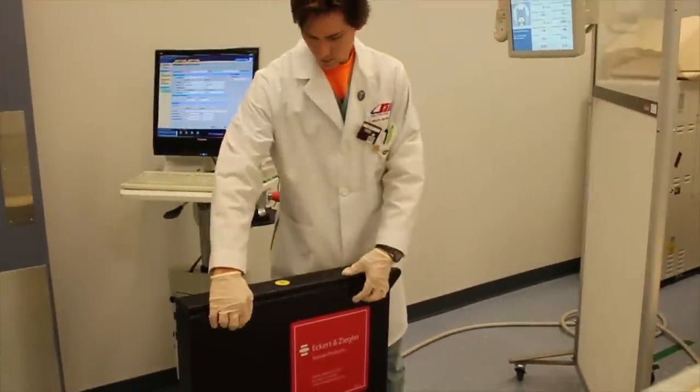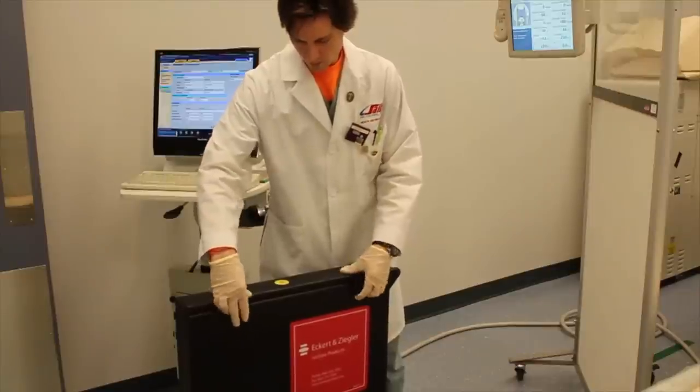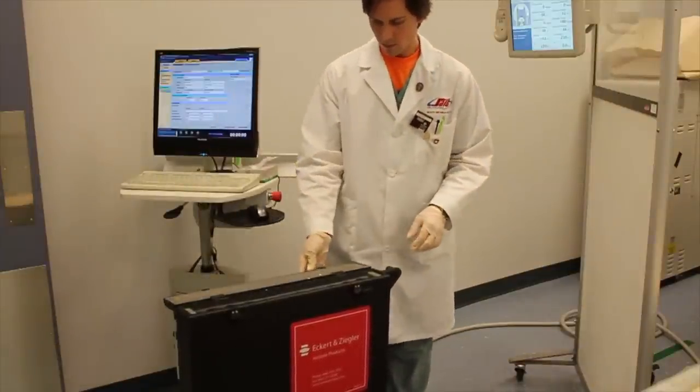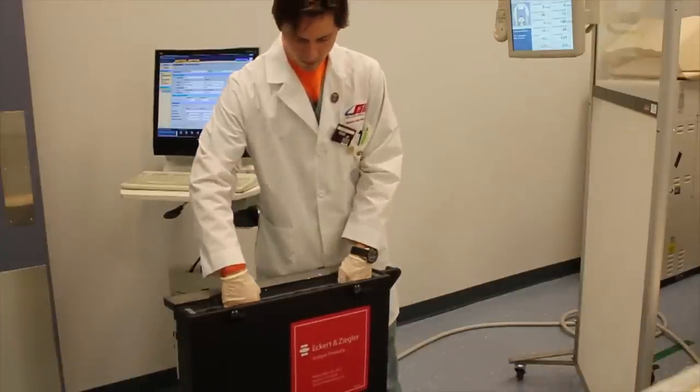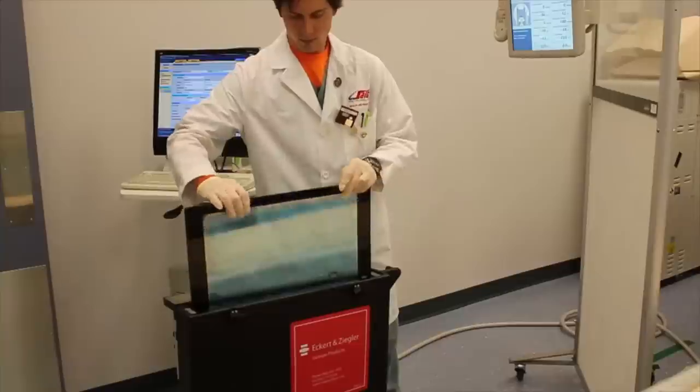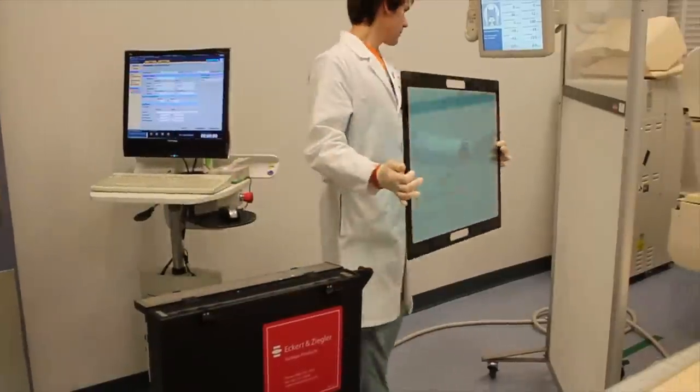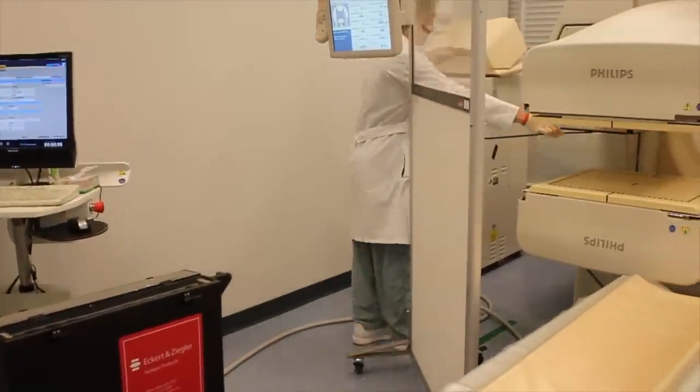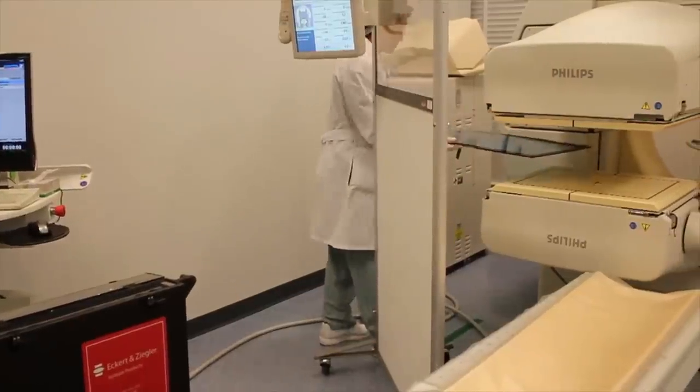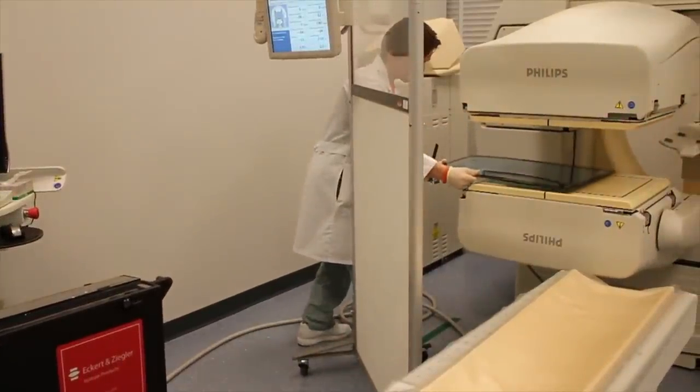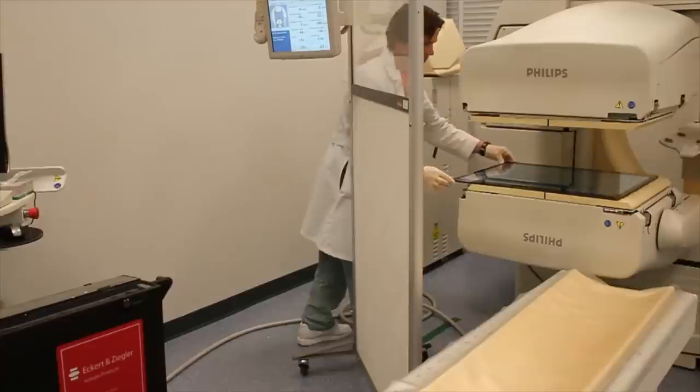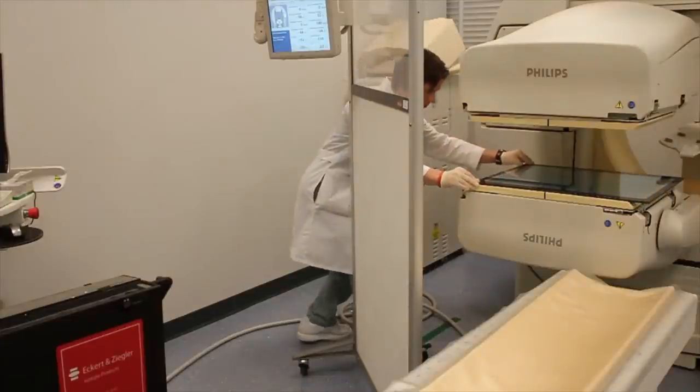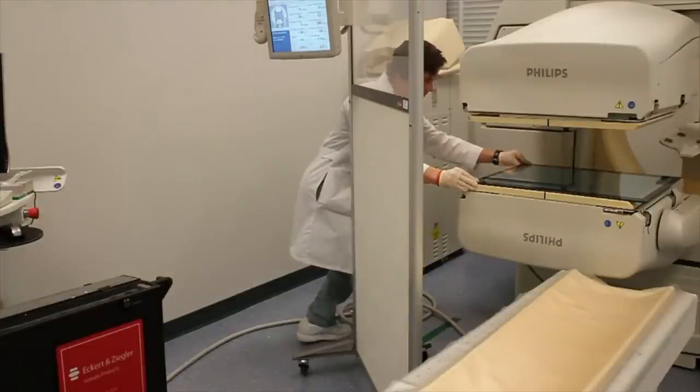Obtain the extrinsic planar sheet source. Here we are using the sealed Cobalt 57 sheet source. This one can be placed directly onto the detector head. Ensure not to run the corners of the source into the detector. Place it flat onto the detector face.